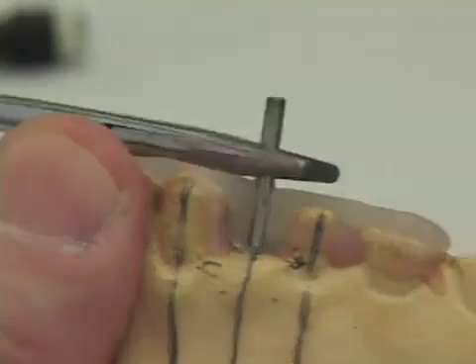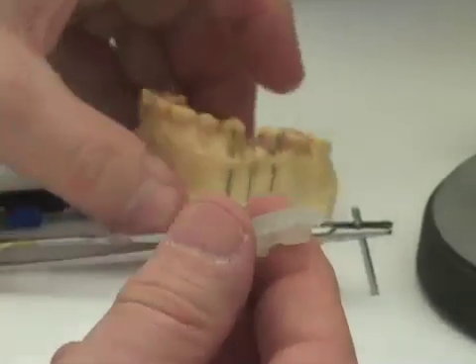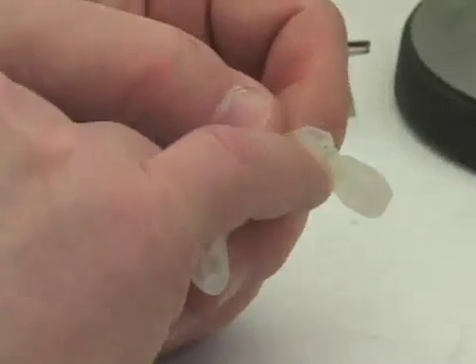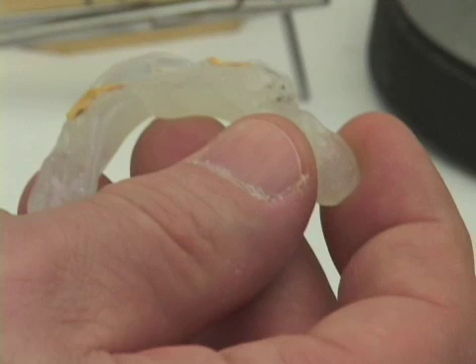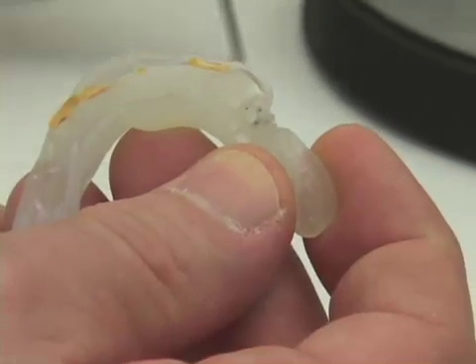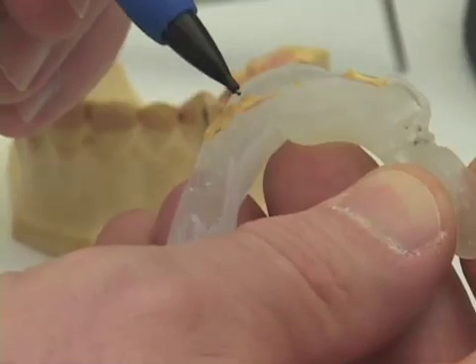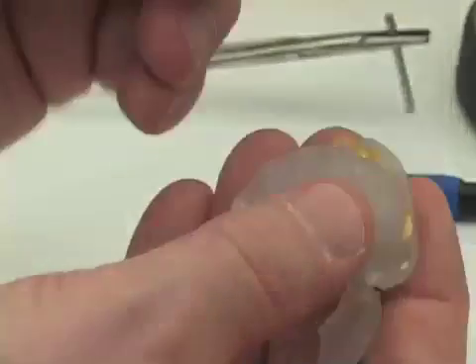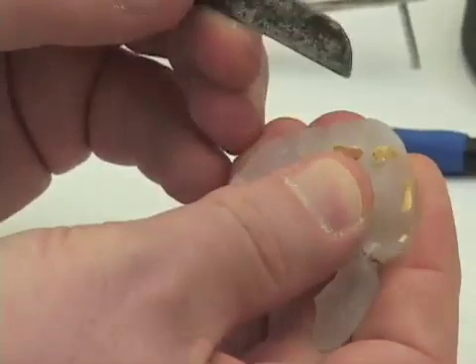We would use a pair of pliers to remove the drill blank first — I want to twist and remove the drill blank. Looking carefully at the underside, you can see where we have gripped a little more than the lingual 180 degrees of our surgical guide. You can see on the underside of the drill guide that I have fractured off a small area of our model. So at this point, I take an instrument and pick out the stone that had fractured into my surgical guide.